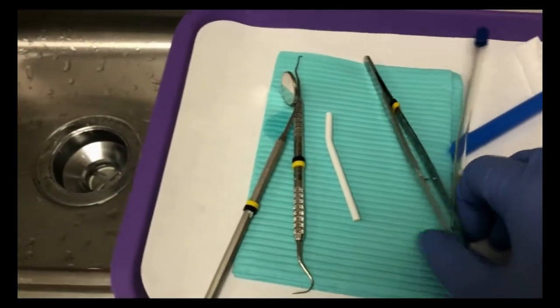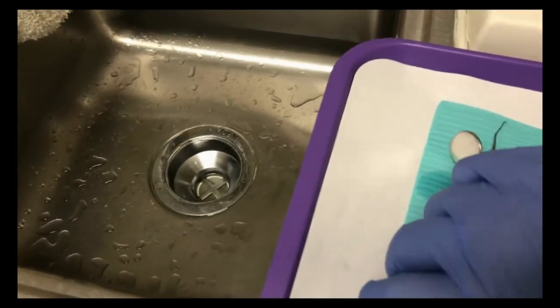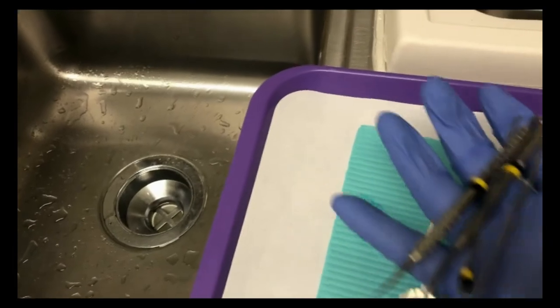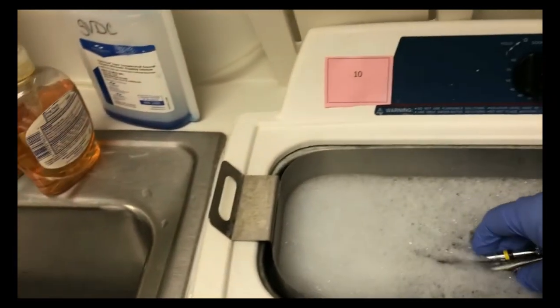Take the patient care instruments to sterilization and place the dental instruments in the ultrasonic cleaner. Disposable items can be thrown out.